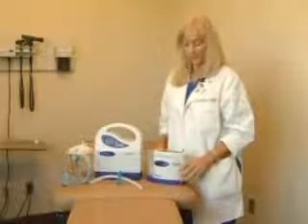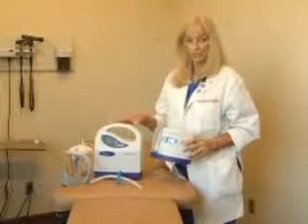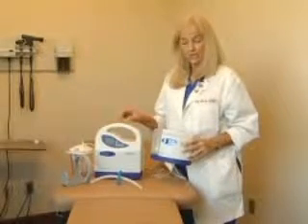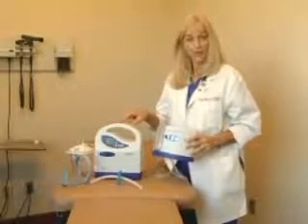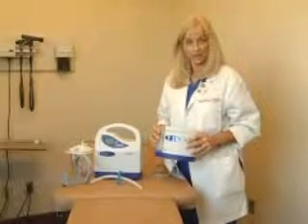What we would like to do is go over the pump assembly of the Prospera Pro 2 and also the Pro 3. The selection of the pumps is based on two things: basically how much drainage does the wound have and how mobile does the patient have to be.